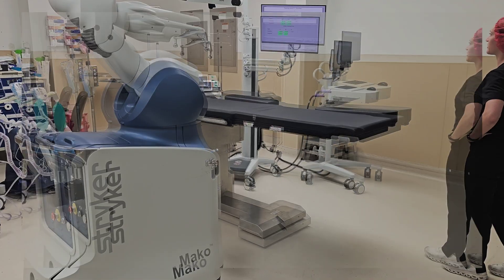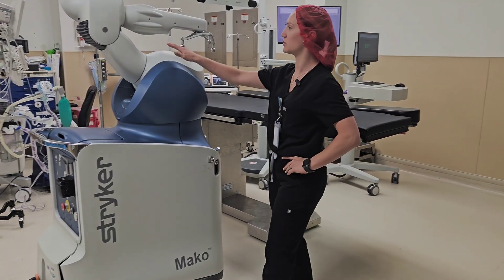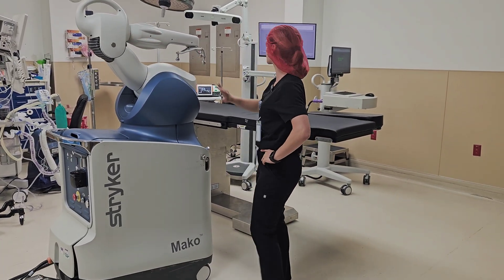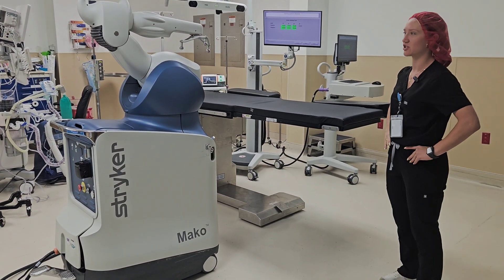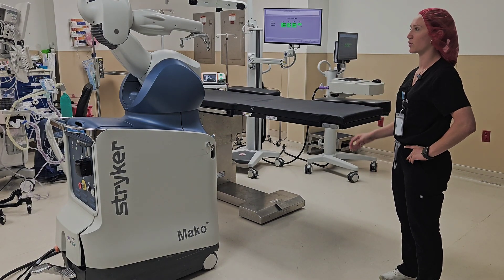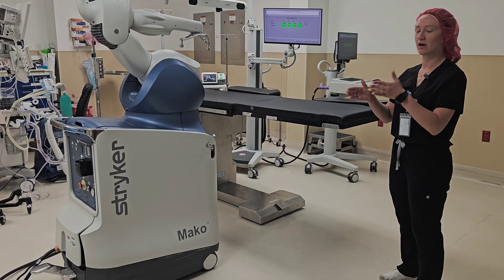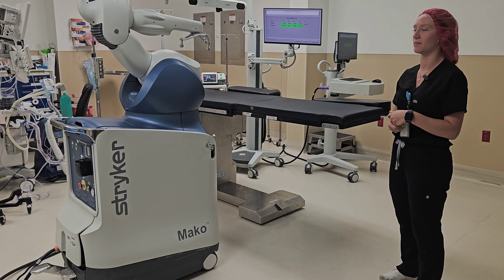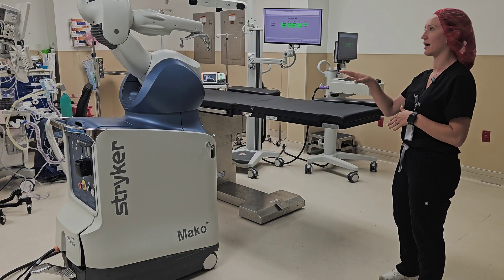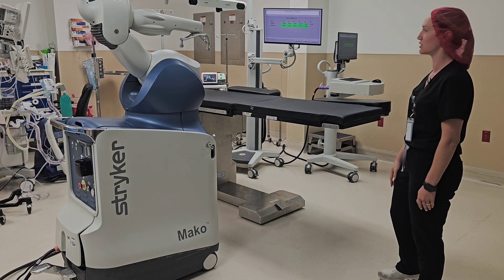What the robot is doing here is running through each series of joints — J1, J2, J3, J4, J5, and J6 — basically testing to make sure it's going to stop properly. Intraoperatively when we're doing our cuts there's a haptic system, and if you go outside of the haptic boundary it will shut off. This step ensures all joints are properly calibrated so they shut off when they need to.